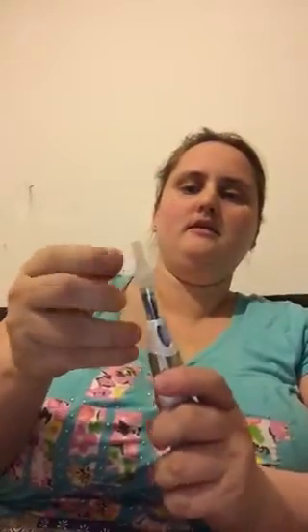This is the important part, because you don't want anyone to get hurt. Get the witch's hat again, pop it back on top so it's safe. You then twist it so it's tight. And then undo it so that you're taking off the whole thing. Pop this into the sharps bin. And get the lid, pop it back on.